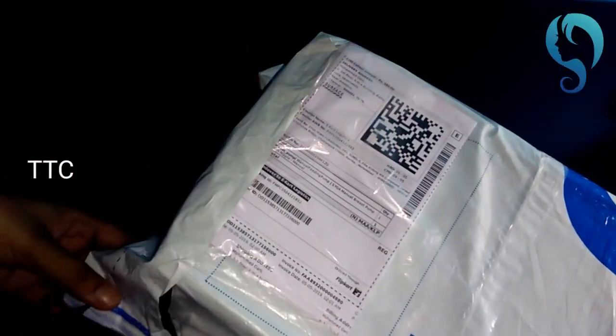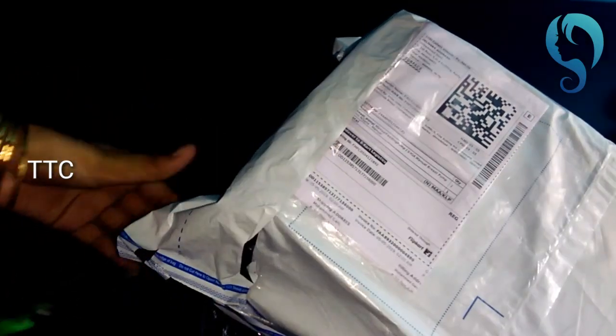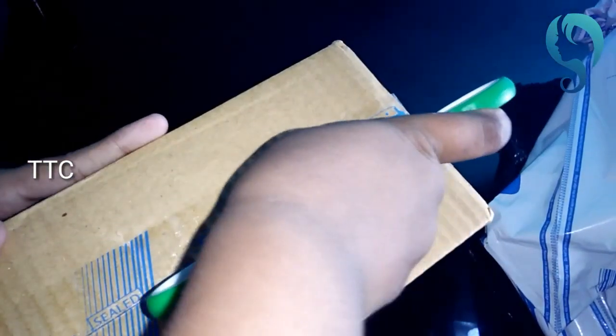What is the name of this product? It is a breast milk pump. I am looking at it online. So I am here with relatives to show you. So, how do I open this first? I am going to show breastfeeding moms — this is a very good method. You can start to use it to collect milk. It is a very good method to avoid milk waste.